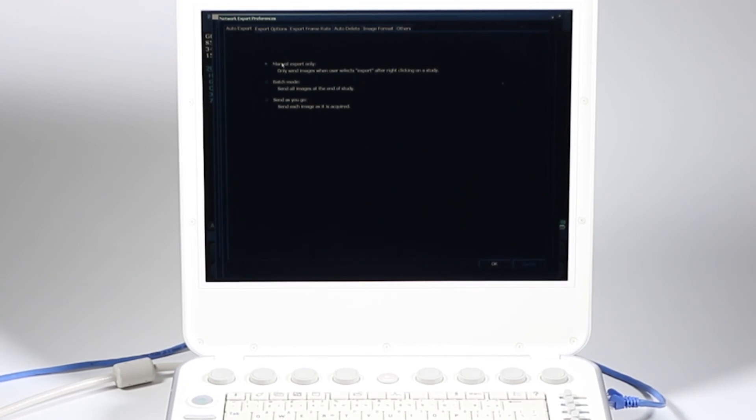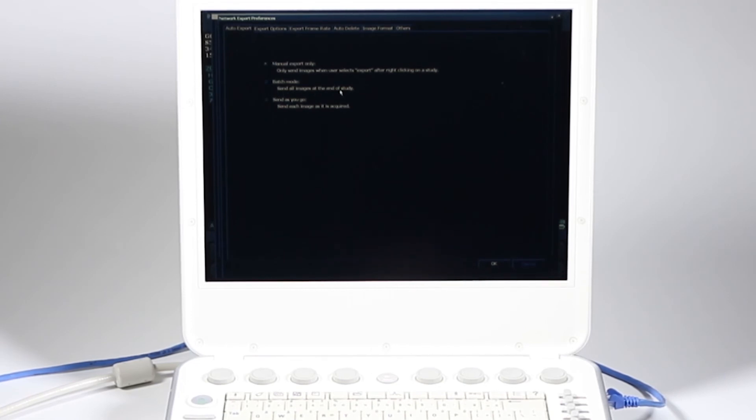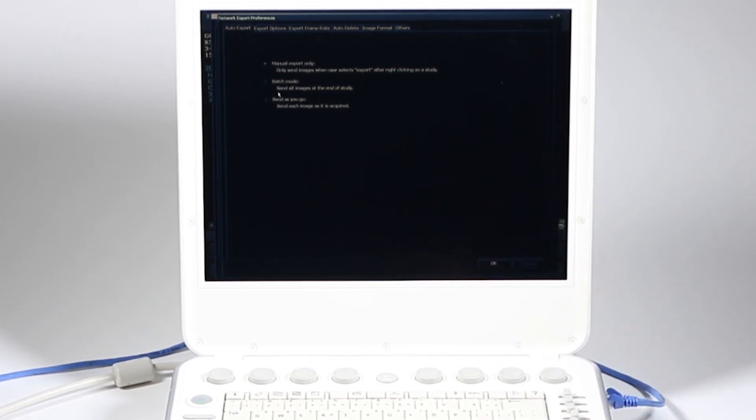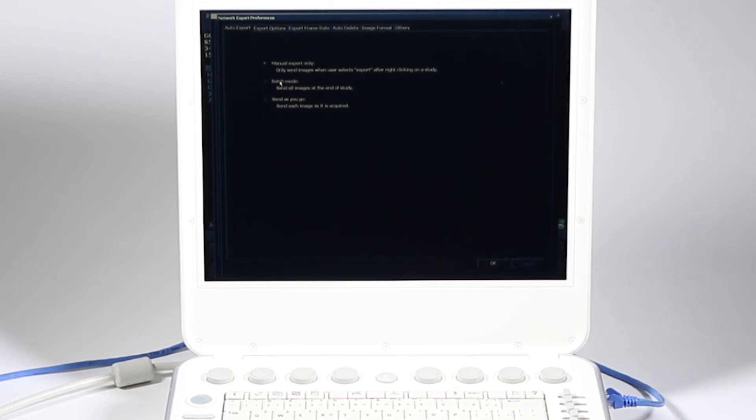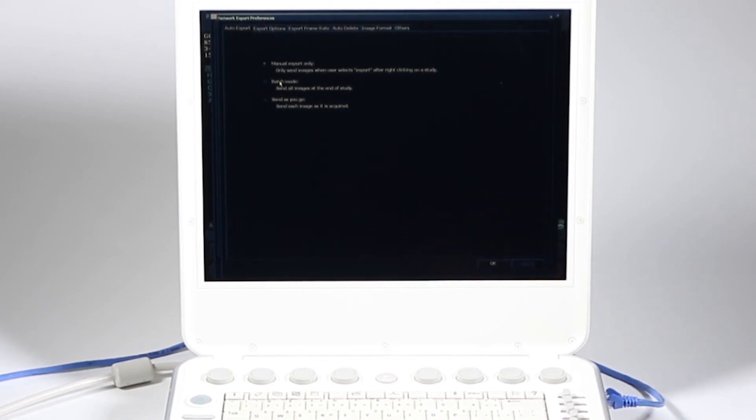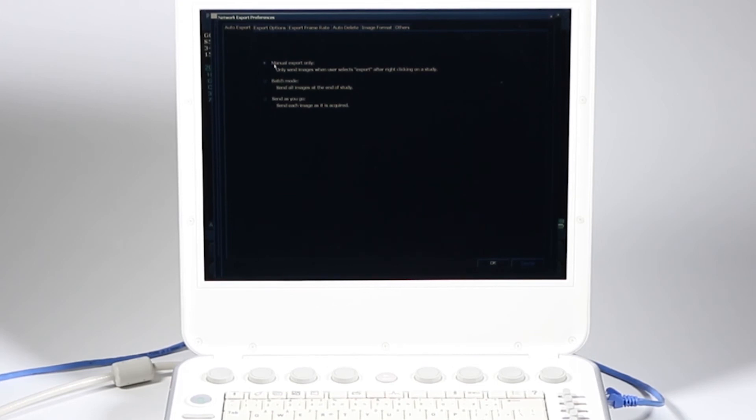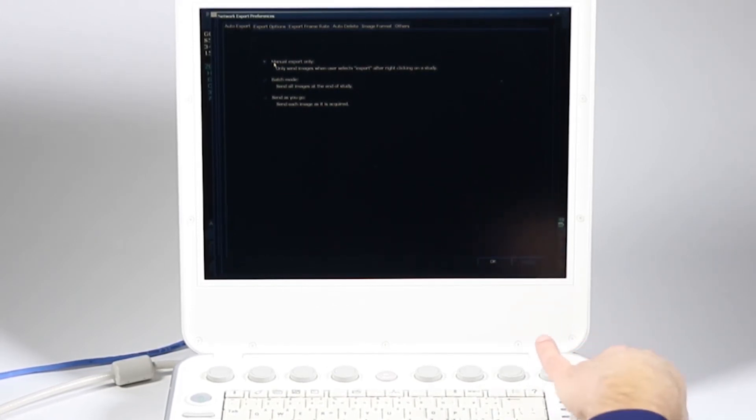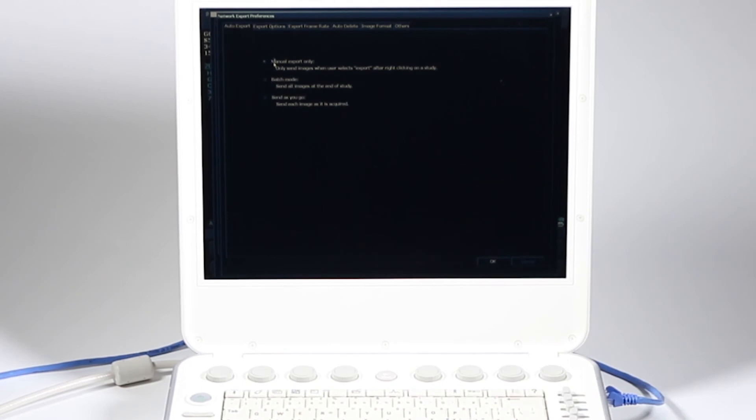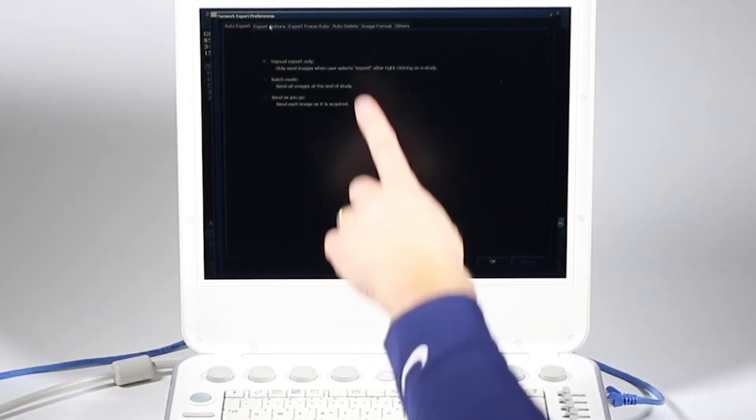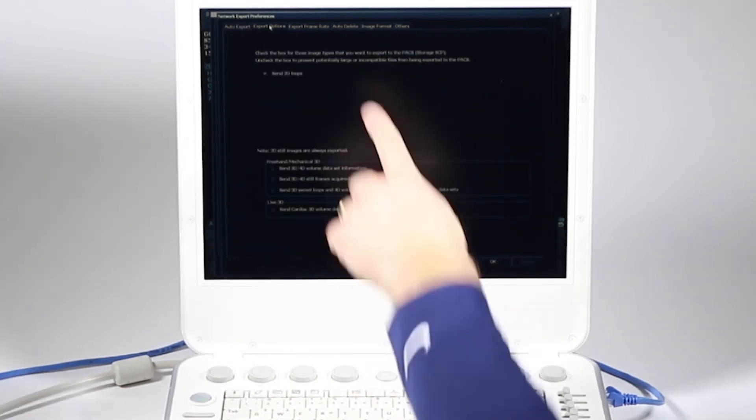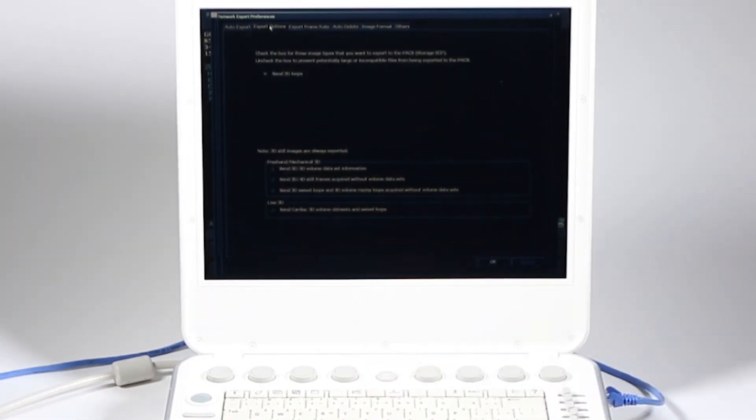Now I'm able to make some adjustments. The primary storage SCP is DICOM, that one there. I'm going to go ahead and click advanced. How do I want to export the image site? Manual export batch mode, so send them at the end of the study. When I click end, is it going to send everything together or send as you go? That's really only good if you're always connected to the network or wireless. Batch mode is nice because at the end of the study, it's all gone. But considering this is portable, you might want to just do manual export only.